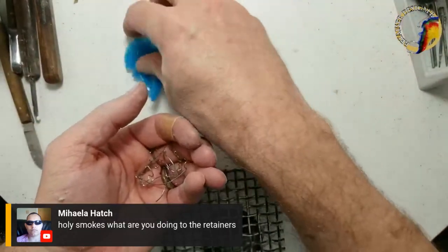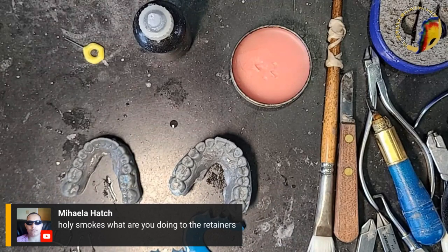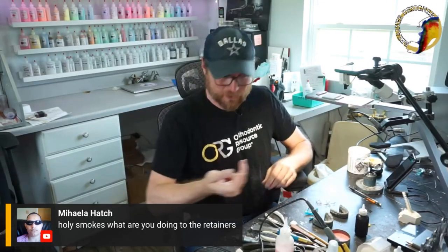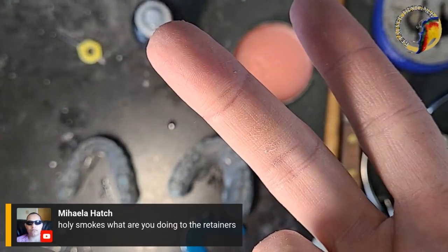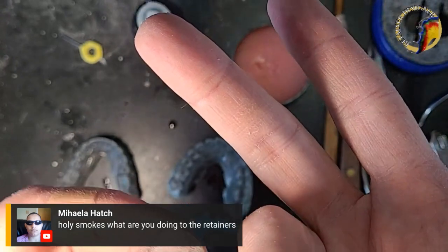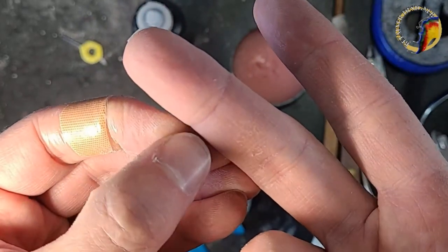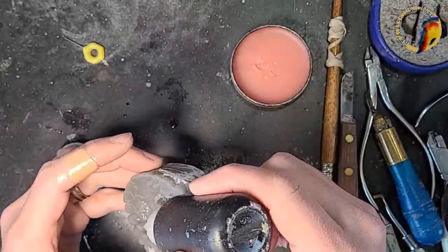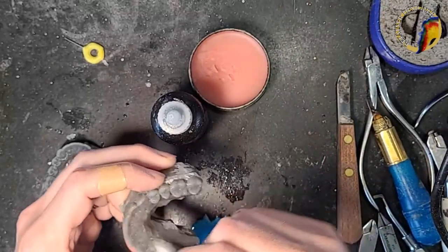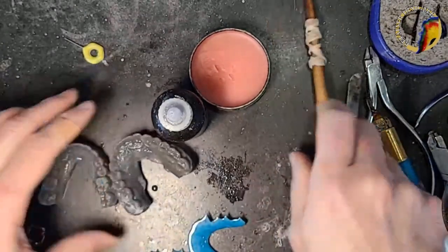The overhead cam shows one of the bad things about using those stainless steel bristle brushes — you'll get tiny little wires stuck in you, you'll find them all over. That's another reason to use good suction. This is just a video on changing out the acrylic colors. The reason I ask for the retainers back is there are rules I've set in my lab for repairs and replacements.